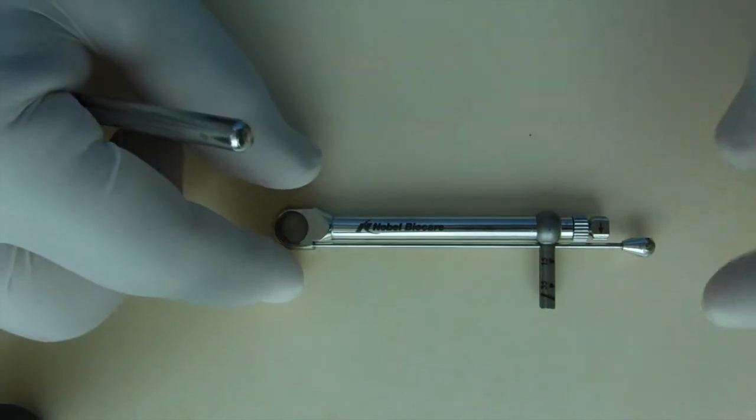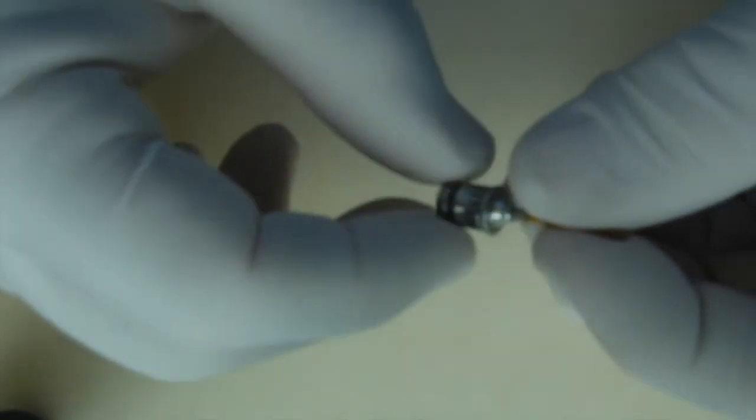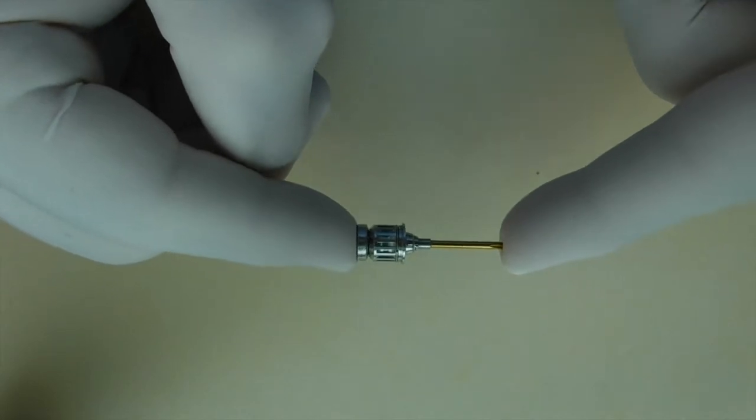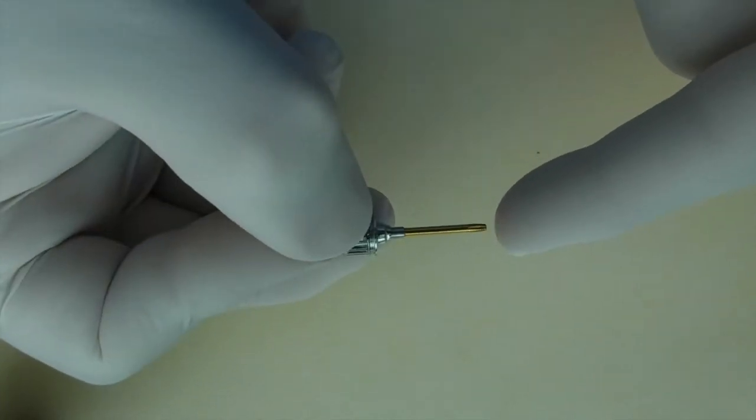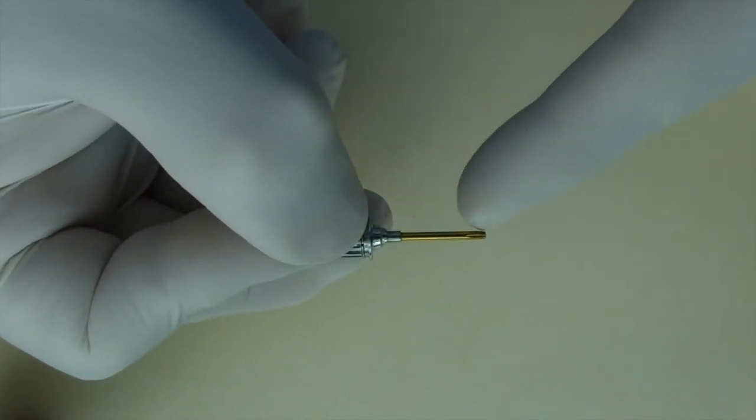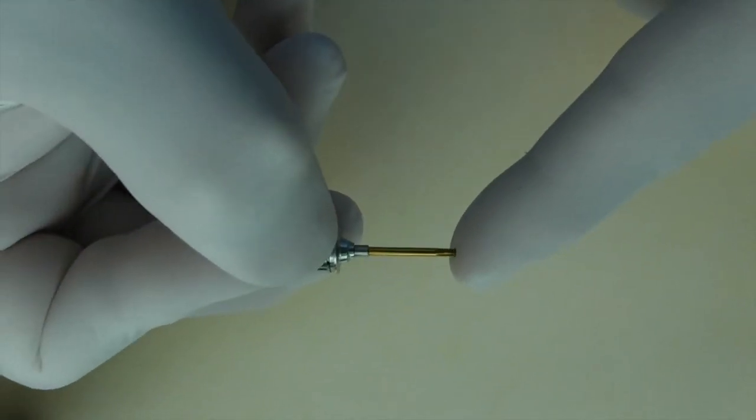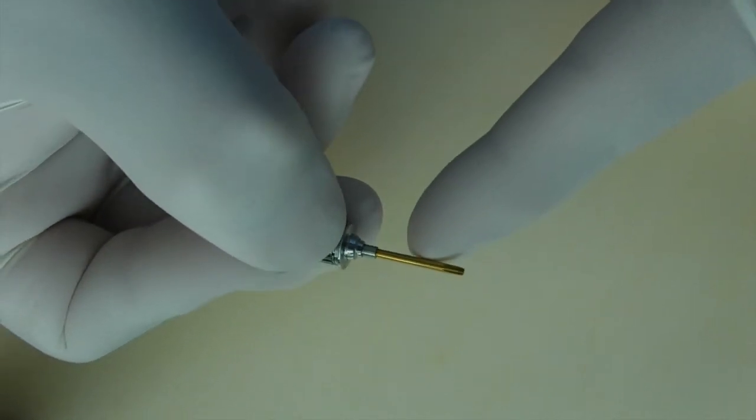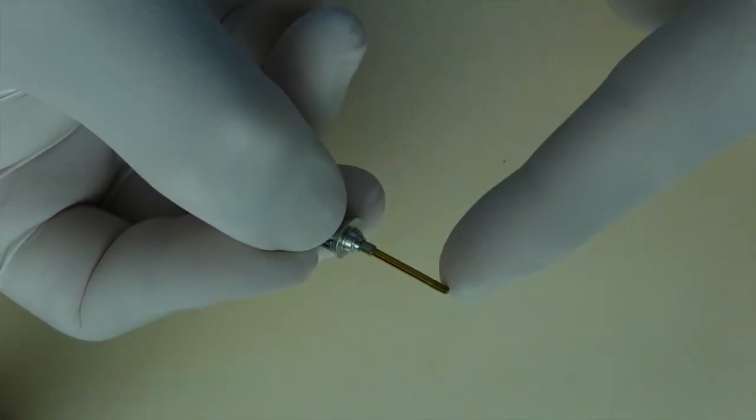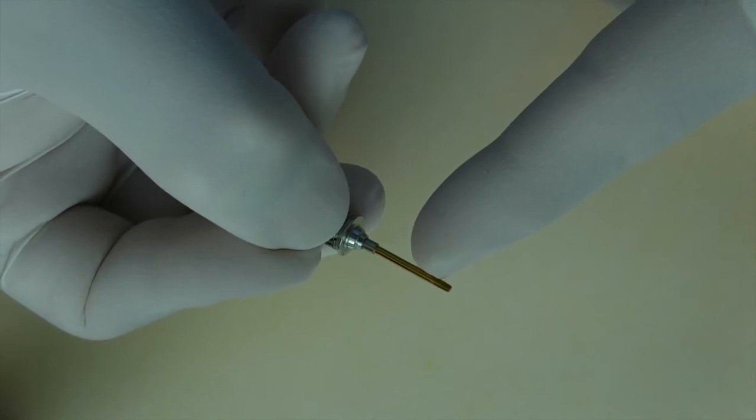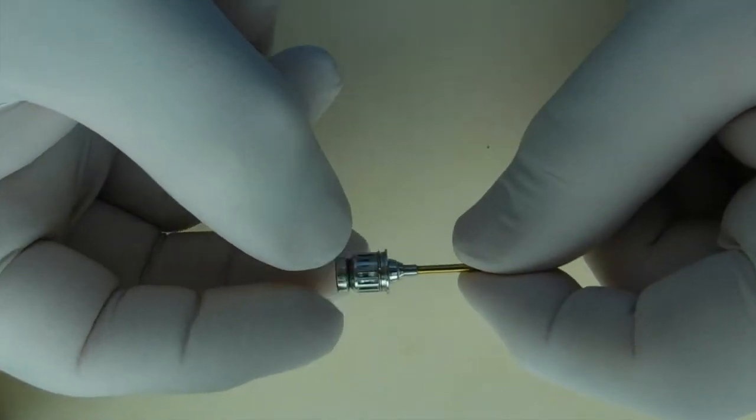Next, let's look at the driver. This particular driver has two components. The actual driver portion with a hex head that engages the screw. Also, it's very important that you have the appropriate driver for the implant system so that the hex head can engage completely, as well as the handle.